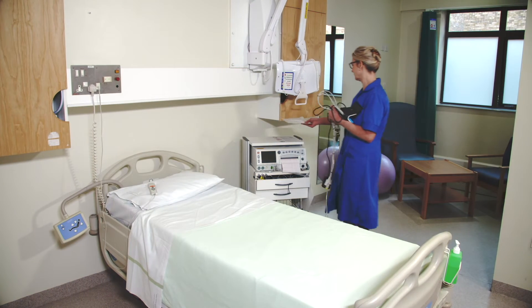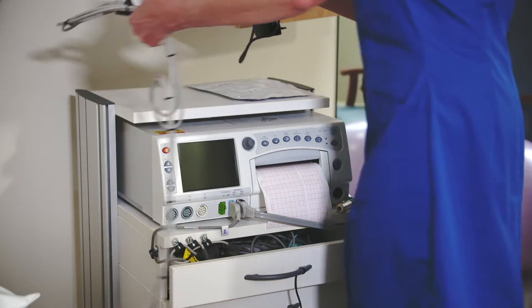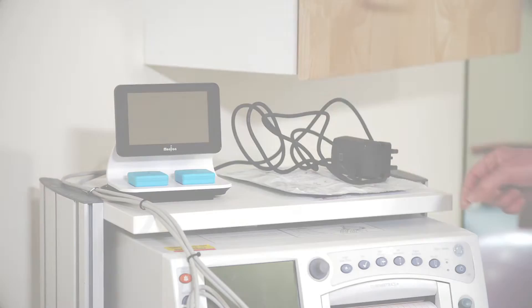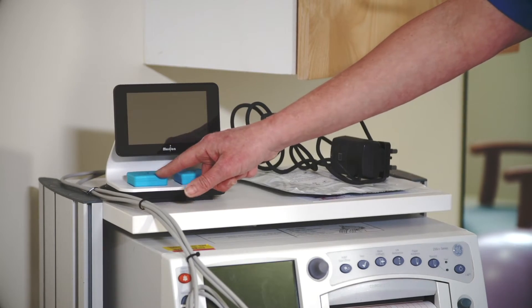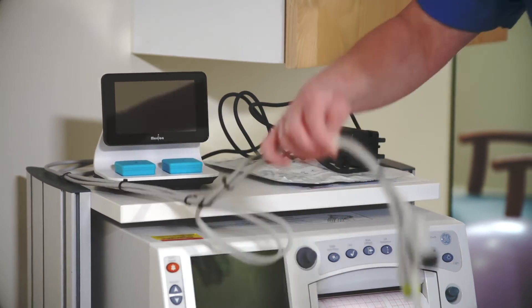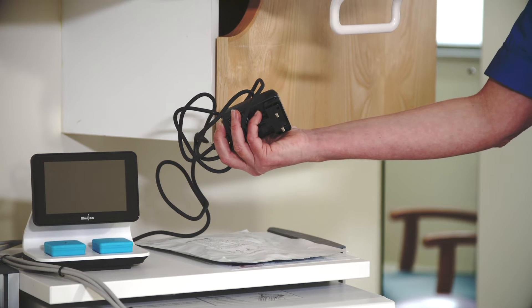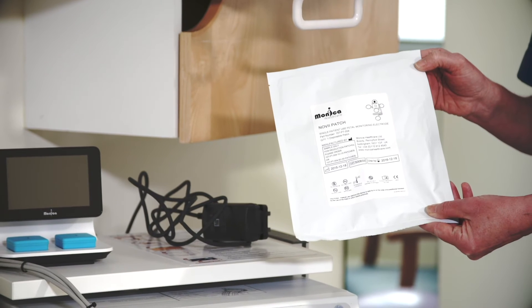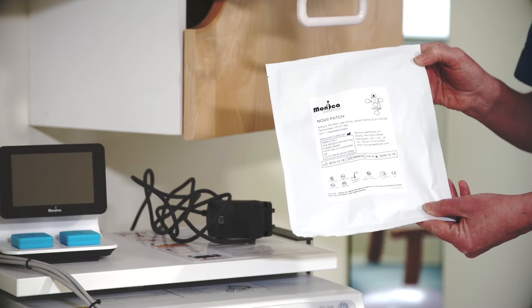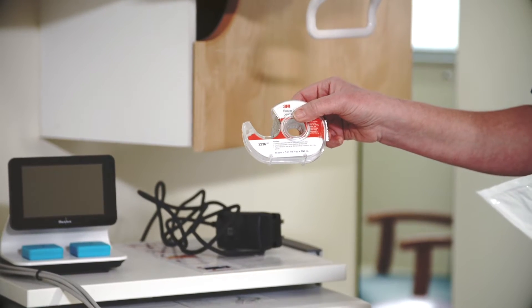If Novi is not in the room, you will need to take one from another L&D room and find a safe place on the cart or on top of the monitor to place it. Before you start, confirm that there are two pods, one in each of the two Novi charging bays, three fetal monitor cables, and a power supply cord. All four should be connected to Novi. You should also bring with you a patch in the silver foil pouch and a roll of skin prep tape if these items are not available in the L&D room.